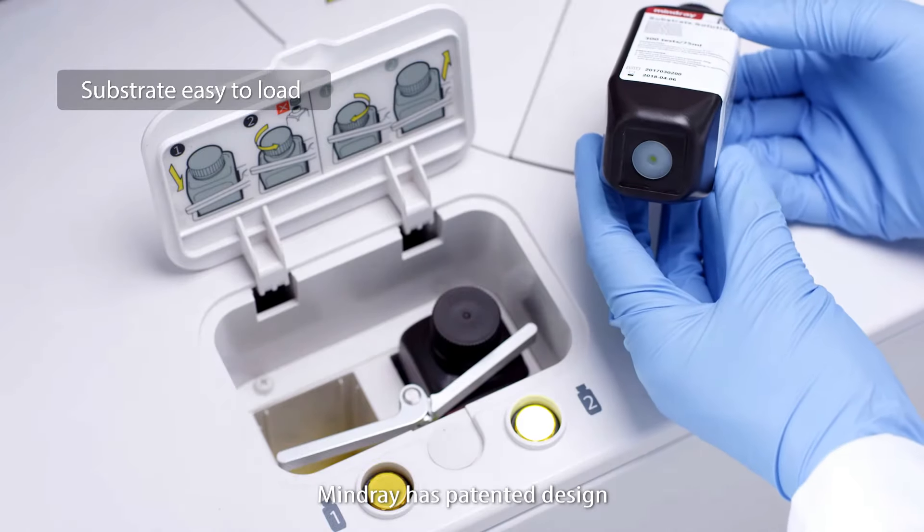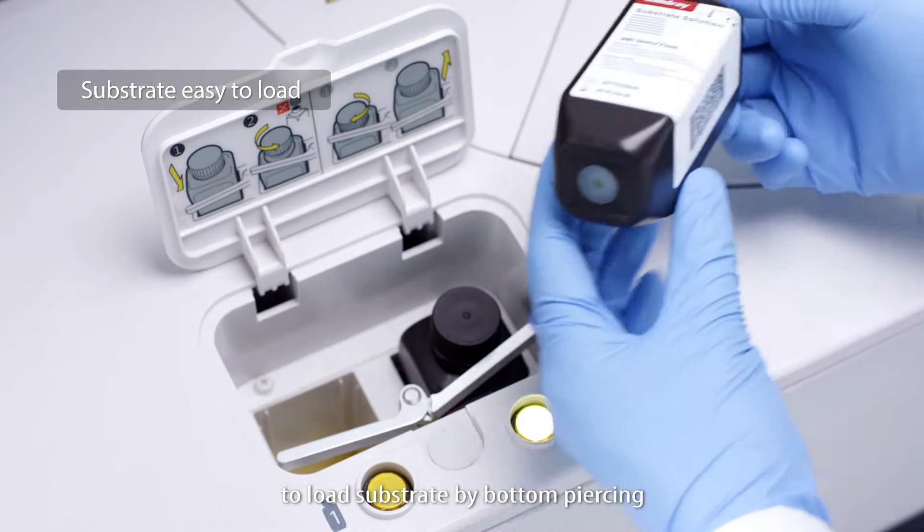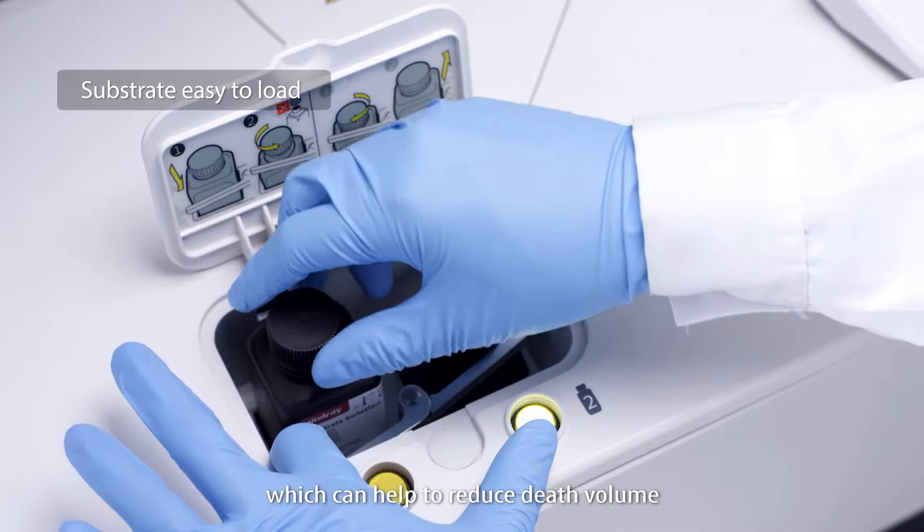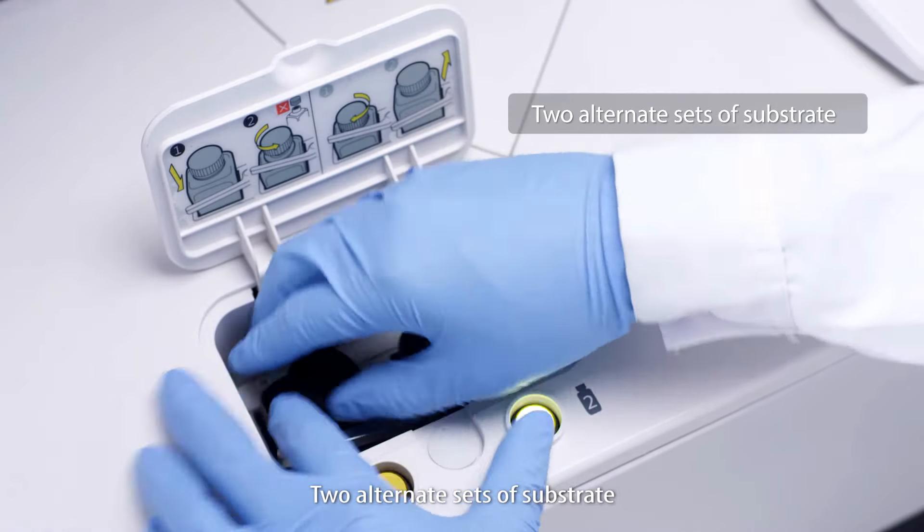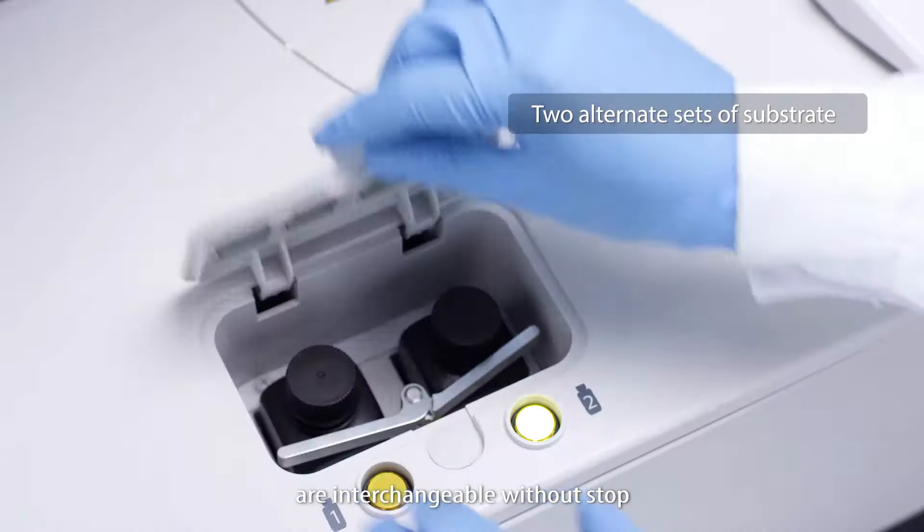Mindray has a patented design to load substrate by bottom piercing, which helps to reduce dead volume. Two alternative sets of substrate are interchangeable without stopping.